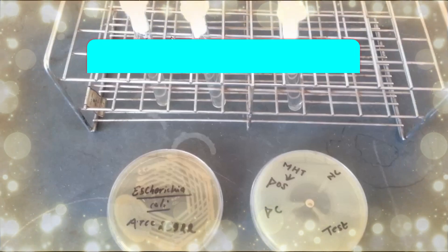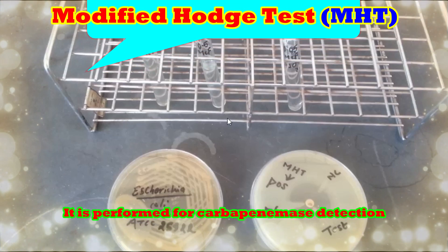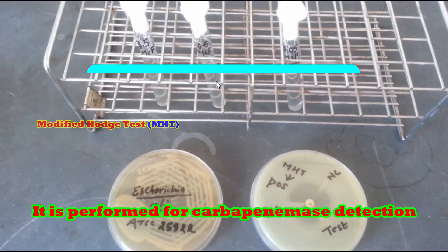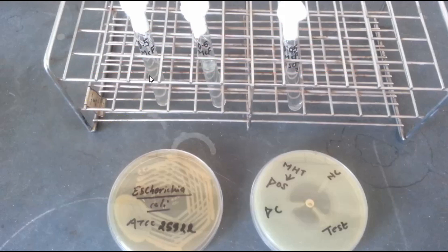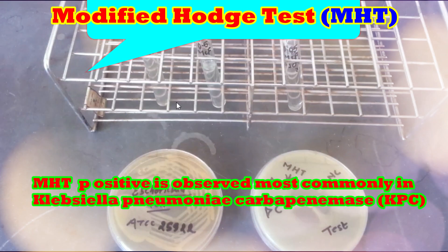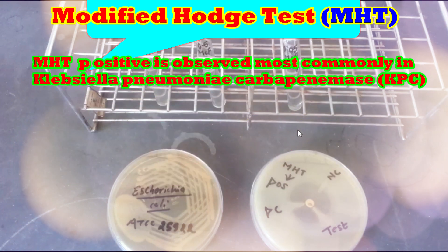Hi, today we are concerned with the Modified Hodge Test for Carbapenemase Detection.